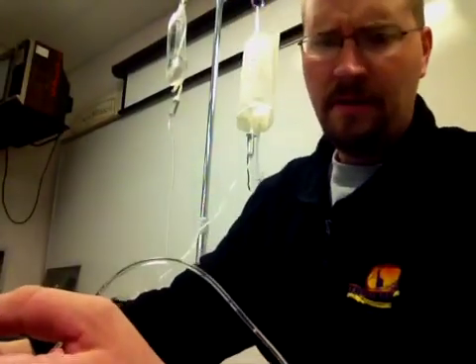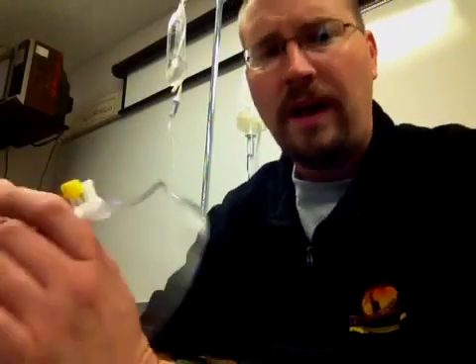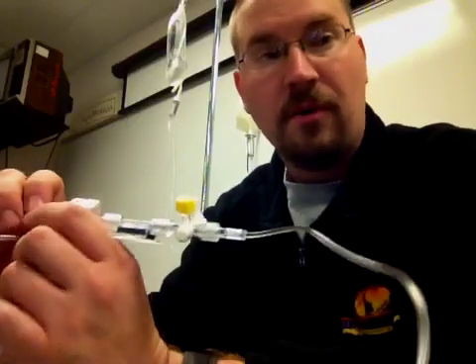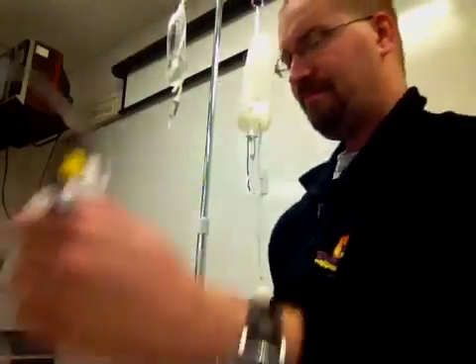If I get any air bubbles in the line, we know that waves can change as they go through different mediums. You probably notice this maybe when I put a fork in a glass of water and it kind of looks like the fork has been broken or shifted. That's simply because the light, of course light is a wave, as the light transitions through the water, it's bent. There's some reflection, there's some refraction, things of that nature. Well, pressure waves are very much the same principle. If they transition from fluid through an air bubble, that is going to change the characteristic of that wave, and clearly that's going to change what we're monitoring. So that's actually something very important that we need to have an air-free system.